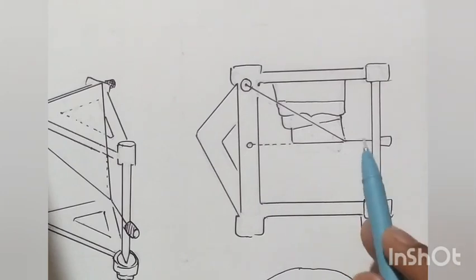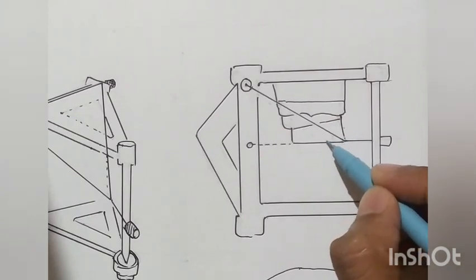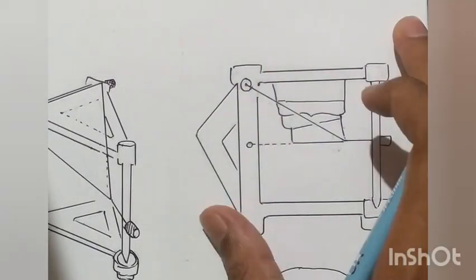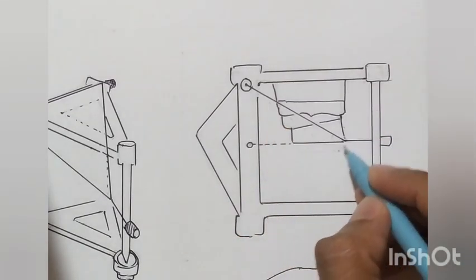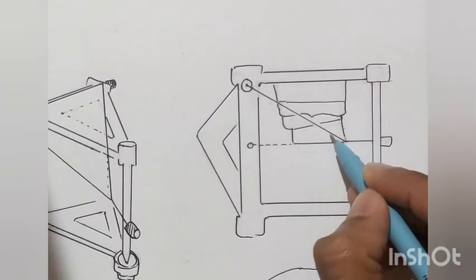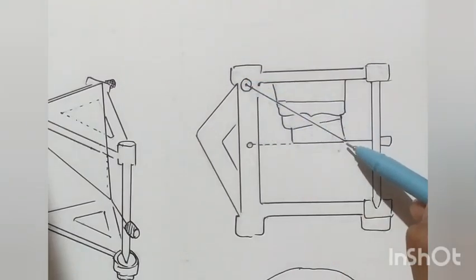This angle is called Balkwill's angle. Each person has a different Balkwill's angle, but in the case of the mean value articulator it will always be fixed, because we are always mounting the cast in a particular fixed position.